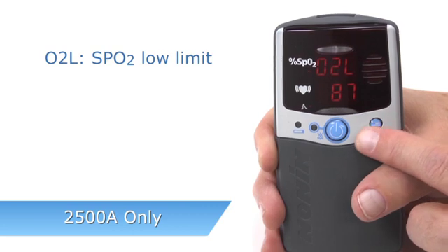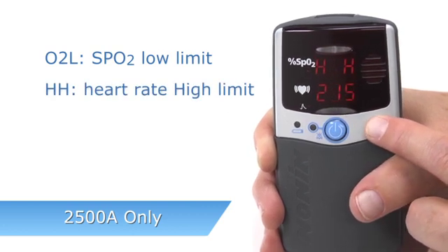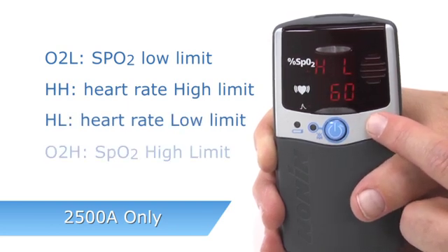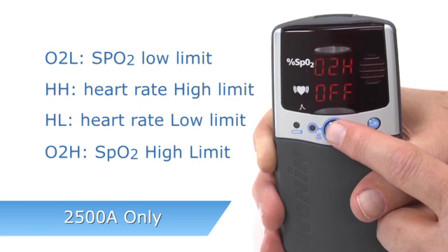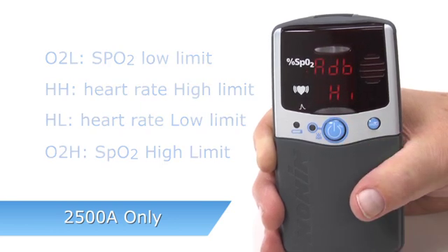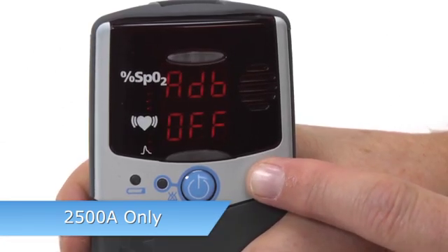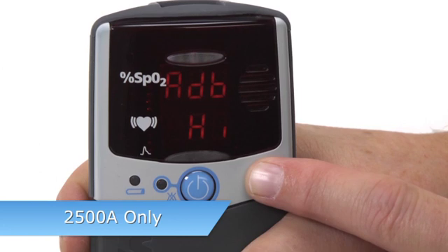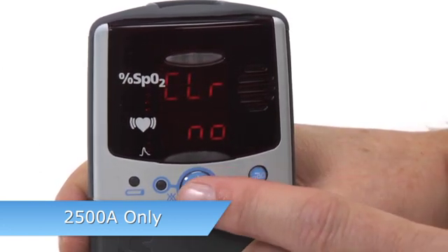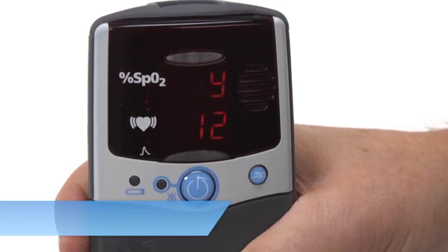O2L is the SpO2 low limit. HH is heart rate high. HL is heart rate low. And O2H is SpO2 high, appearing in that order. You can see the audible alarm setting, which may be high, low, or off. You will then enter the memory, date, and clock settings just like the 2500 model.